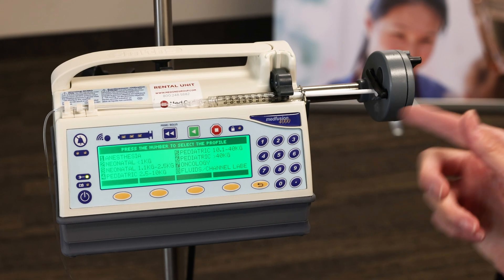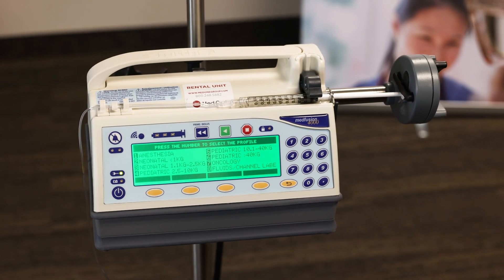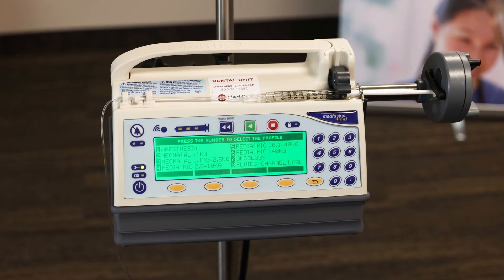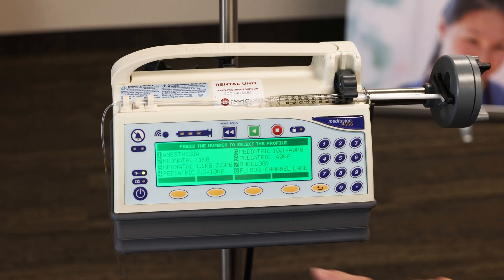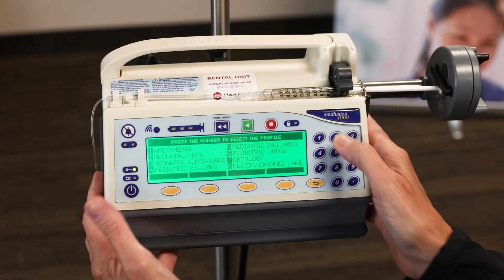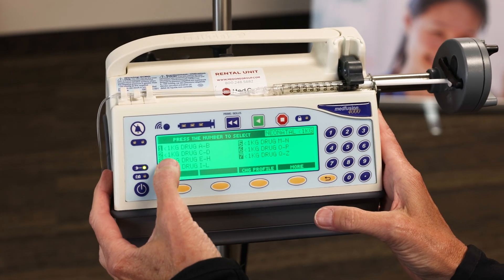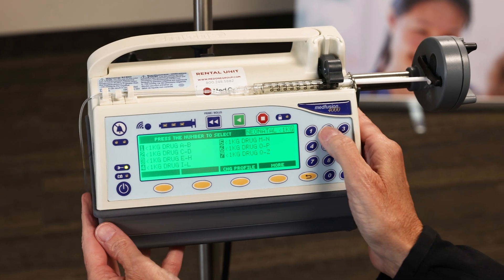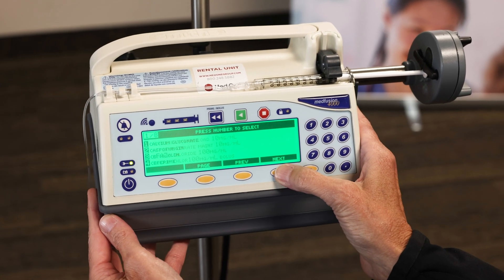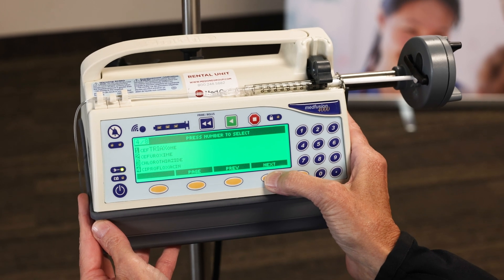I already have my next syringe loaded for our continuous infusion. We're going to be using dopamine, and I'm using a 1ml syringe. We'll go back into the same profile, number two, for one or less kilos. Then we'll be choosing number two for the drug C through D for dopamine. I'll press next so I can toggle to the Ds.